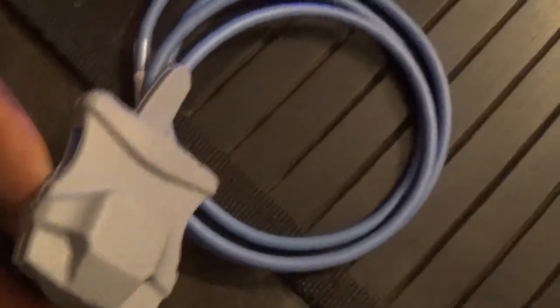This is the heart rate sensor that's plugged right in there. And then if we look at the other side of this, we can see where the skin conductance, heart rate, temperature, and breathing sensors would plug in. That light is just telling us that we're connected and it's getting power.